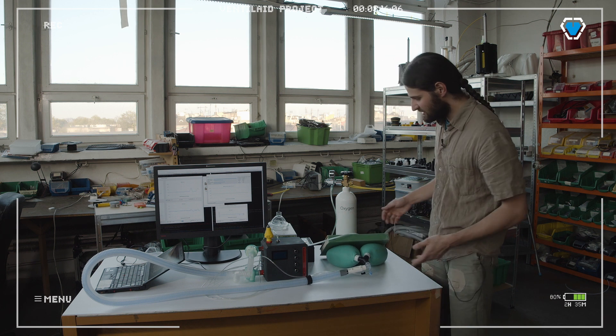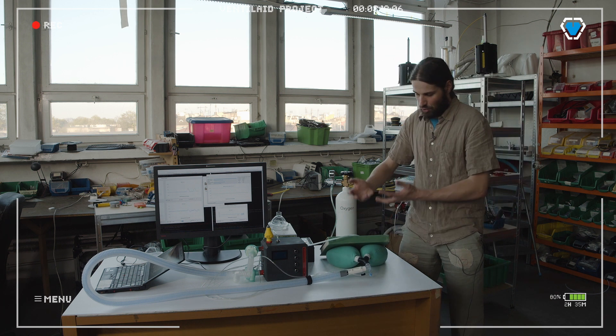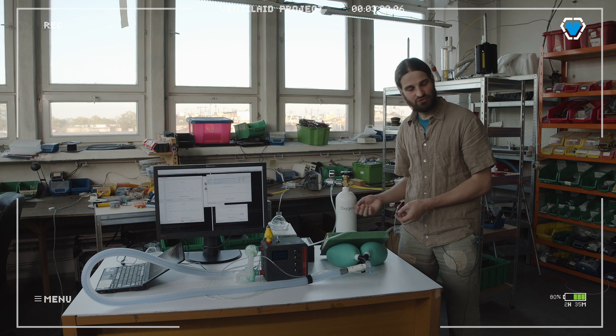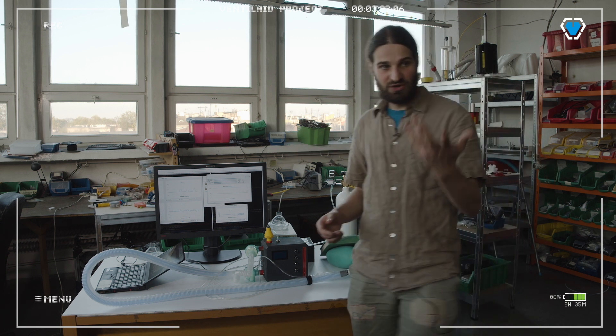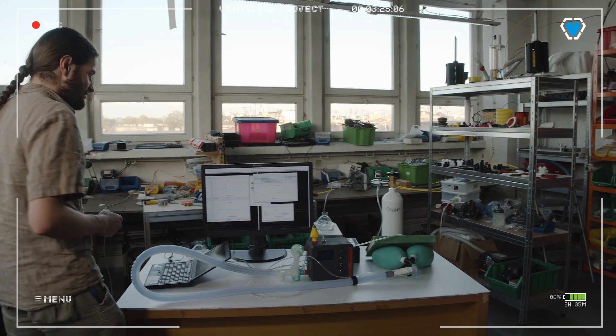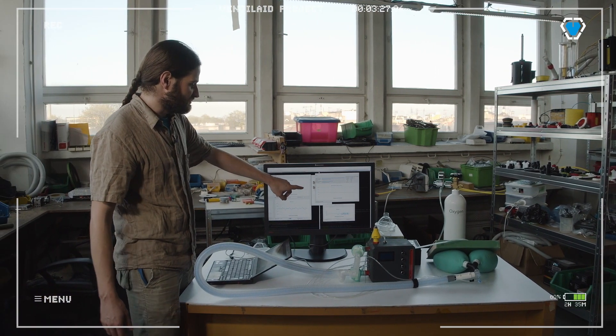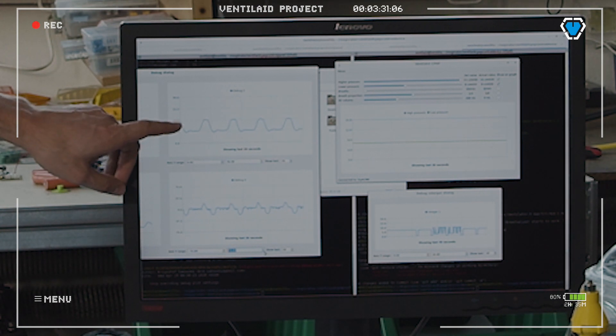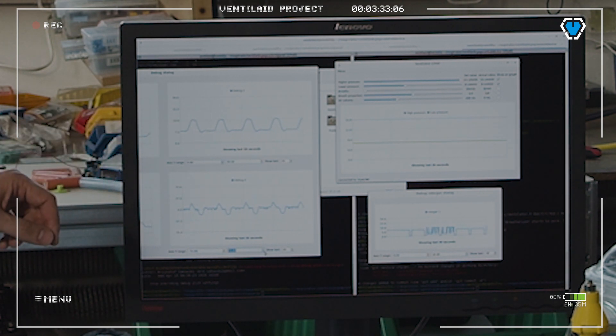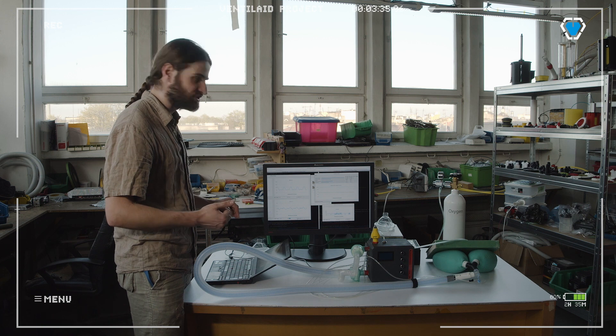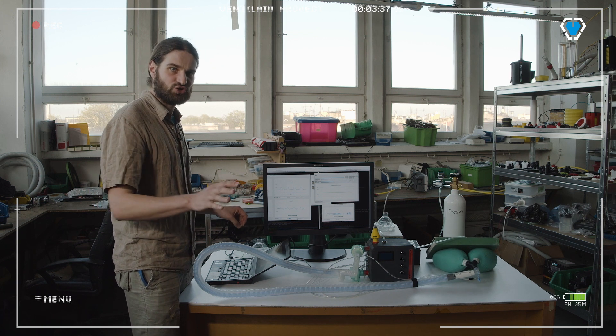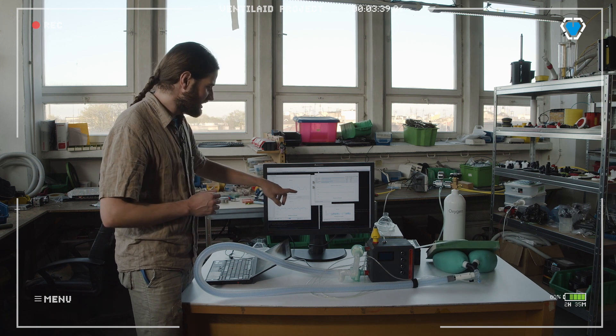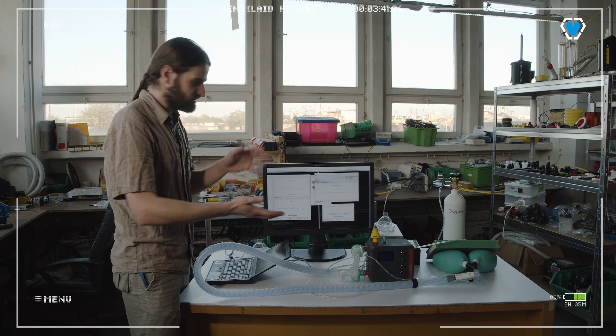As you can see, the lungs are opening and then closing accordingly. You can see on the plots the pressure and flow. For the brief moment, the pressure gets higher up to plus 15. This is about the maximum what you would be putting to non-invasive treatment. Usually with COVID patients doctors opt for smaller values, but this looks good when it moves a lot.